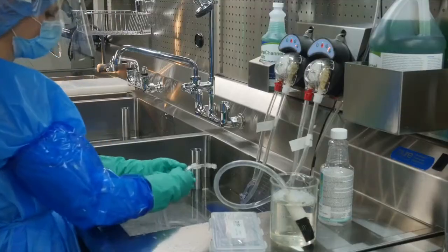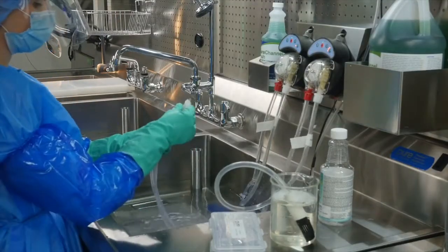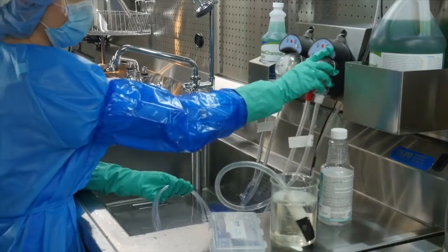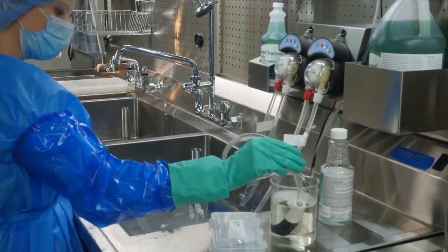High bleach or alcohol disinfectants are not recommended for flexi-pump tubing. Pro Spray is also ready to use and does not require dilution.